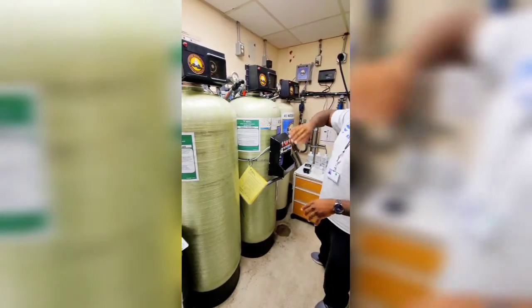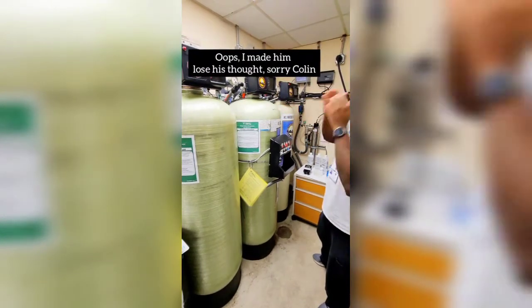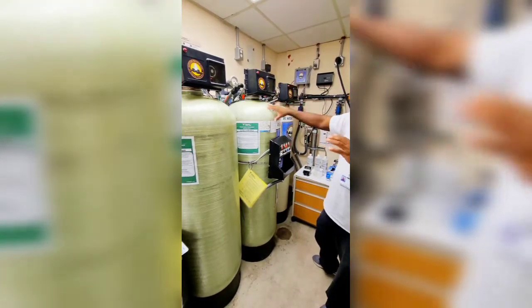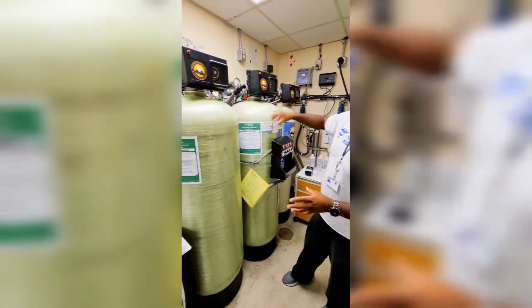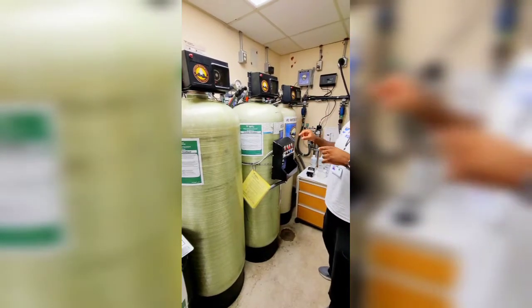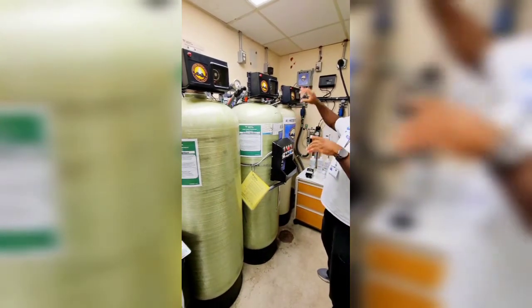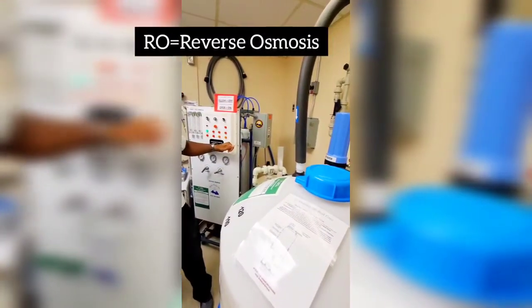These things do regenerate every night. They go do a backwash every other night — I think the schedule is Sunday, Monday, Wednesday, Friday. When they do that, your RO is not functioning and you cannot get any water at that point.